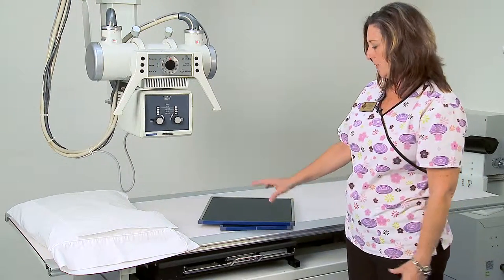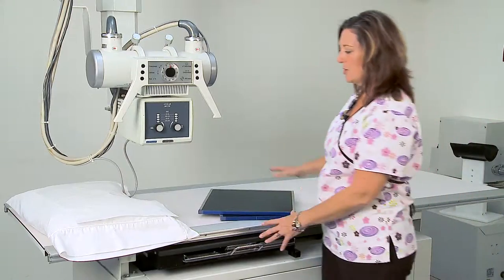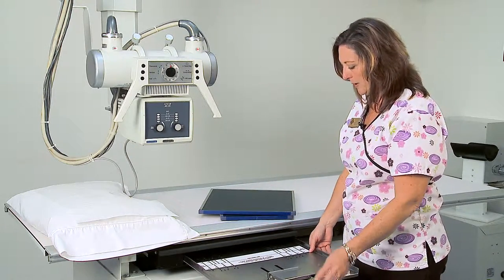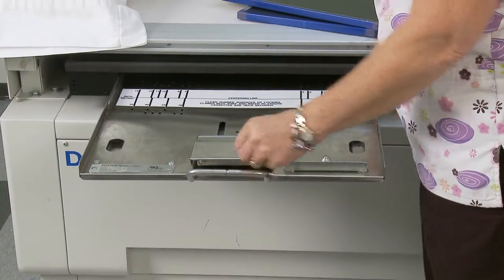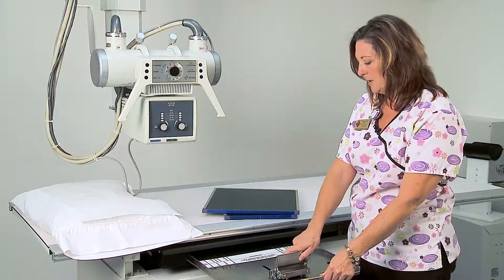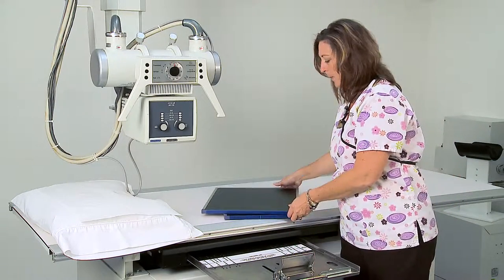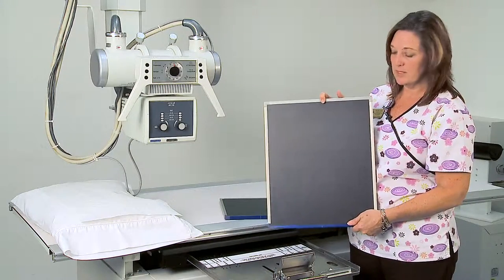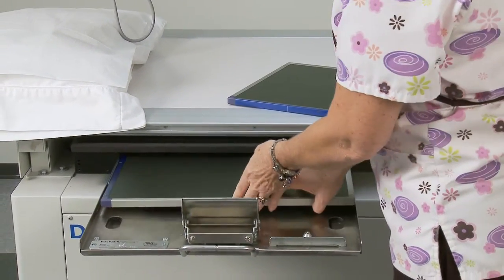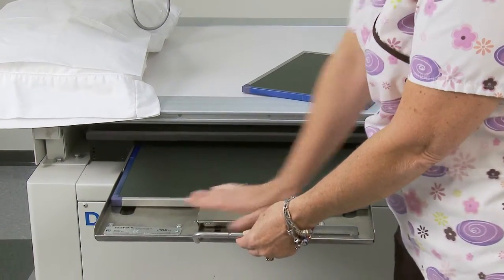The table is also able to move up and down, so we'll bring it to its highest position, which gives a good working height. When you pull the bucky tray out, be very careful not to pull it all the way out — there is a lever here. If you lift the handle it slides back and forth, accommodating the different size cassettes. We'll place the 14 by 17 inch cassette in lengthwise or longitudinally — it slides right in and you take the handle to lock it into place.